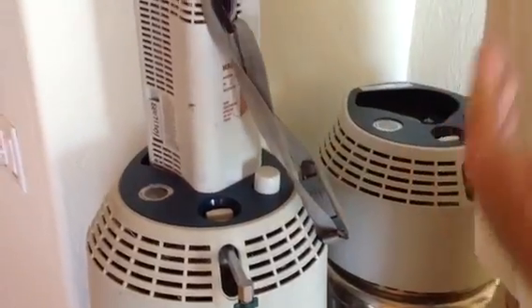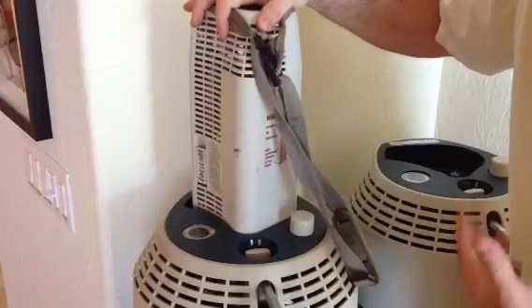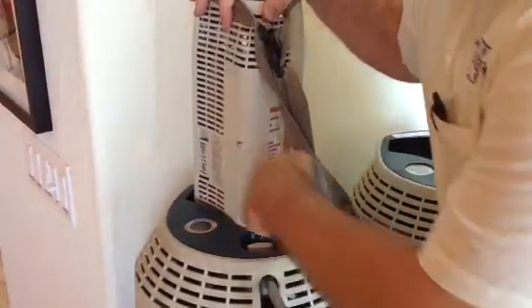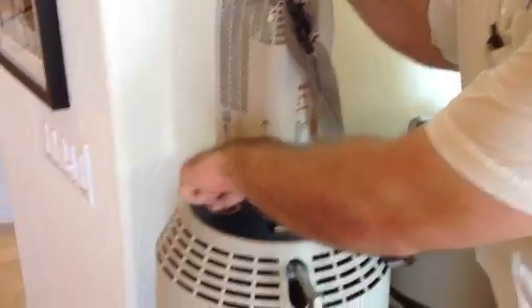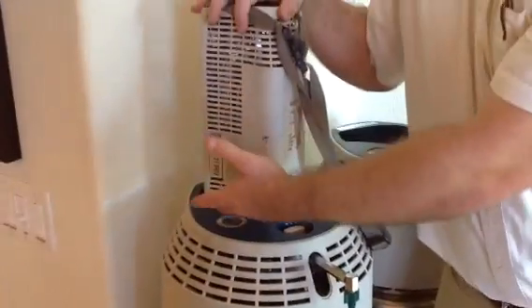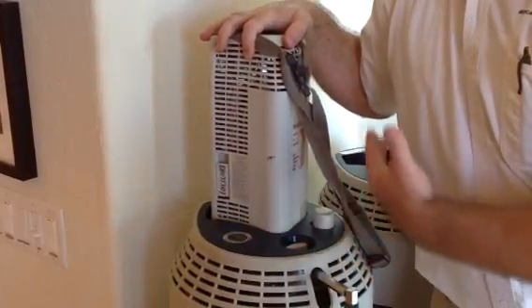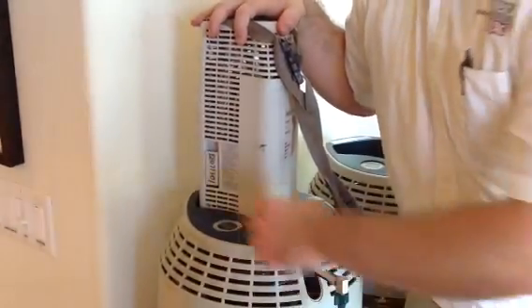As you press down, you're going to notice that there is no sound right now. In order to properly fill — in order to get liquid into this portable system — there is a vent tab here, which is marked with numbers, that you must pull down to let gas escape so that liquid can enter the portable. By doing so, we're actually going to hear that gas escape through the system, and it may be loud at first. A quick demonstration.